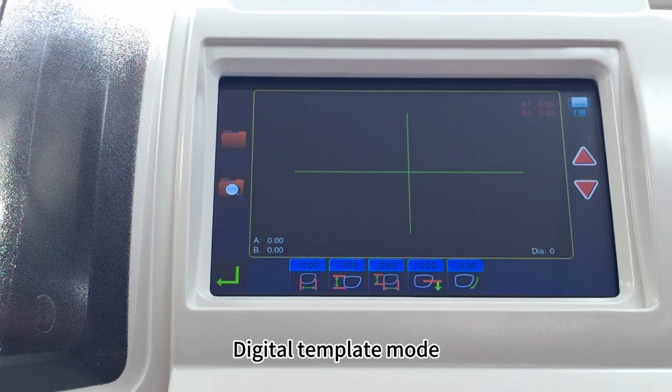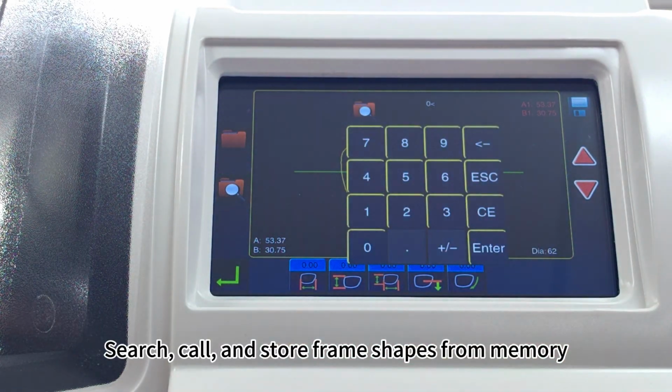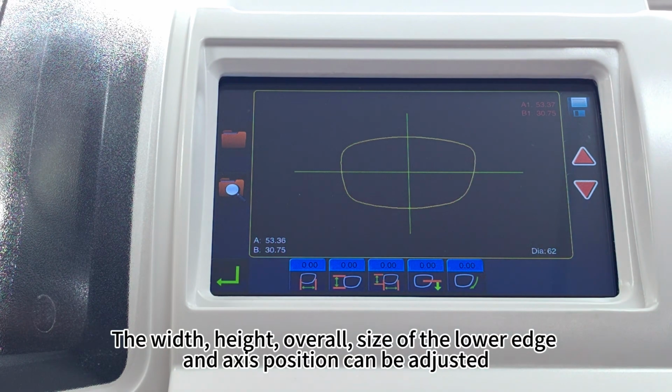Digital template mode. Search, call, and store frame shapes from memory. The width, height, overall size of the lower edge, and axis position can be adjusted.